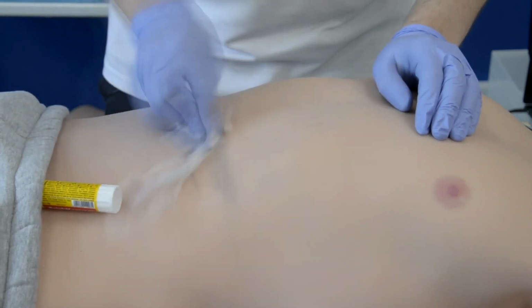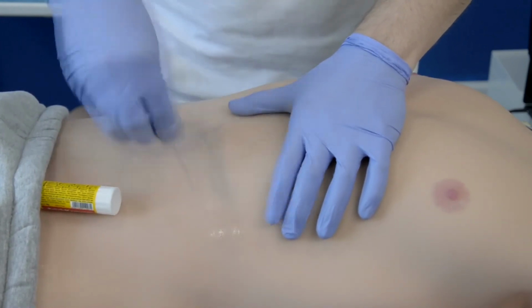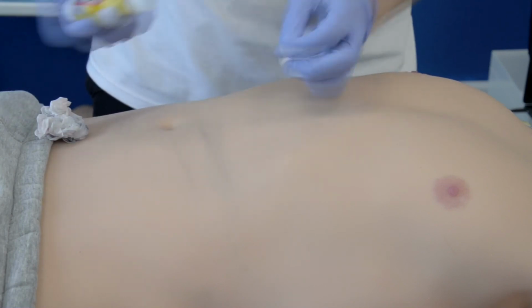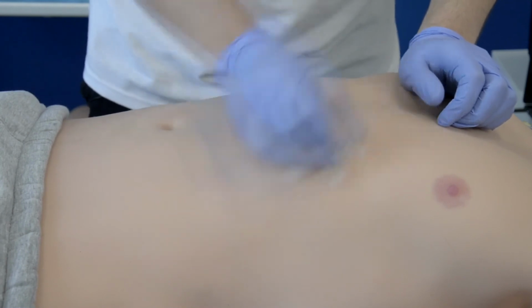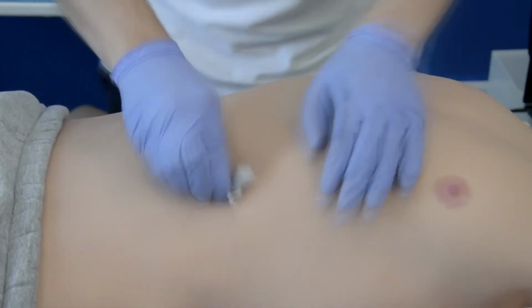Not only is it stain resistant, it is also very stretchable and durable, hiding puncture marks and making it soft to the touch, just like real skin. Here you can see me wiping off glue, and this is important because this means you can glue bone fragments onto Leonardo's and various attachable pads to simulate burns, to simulate little particles of dust on the skin and protruding fractured bones as well.